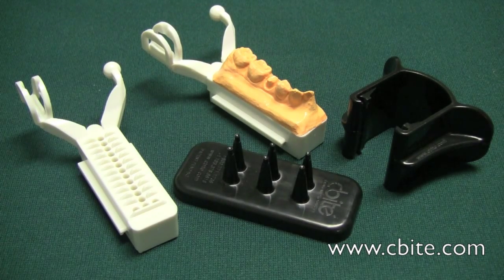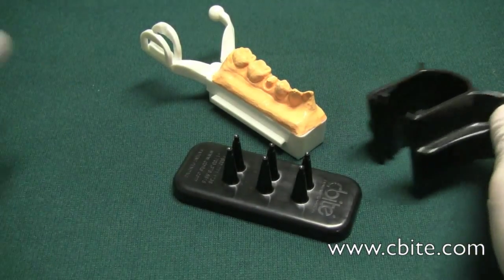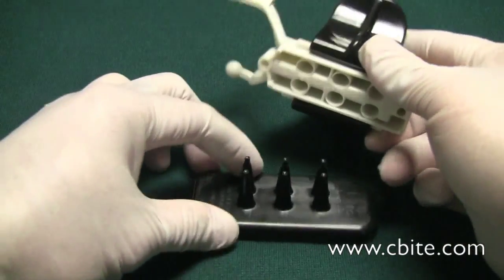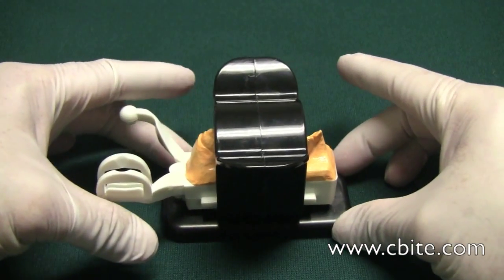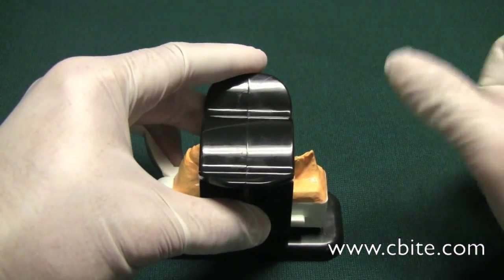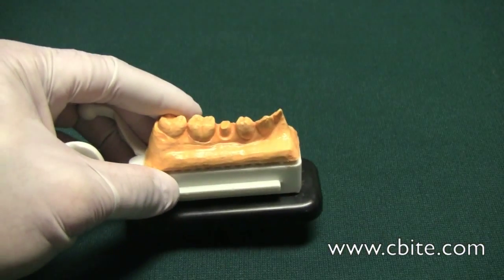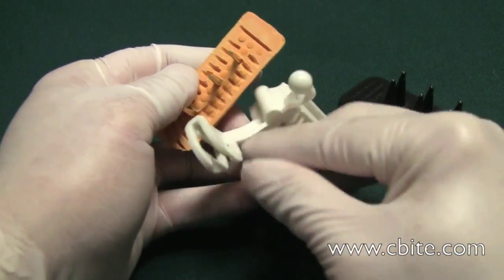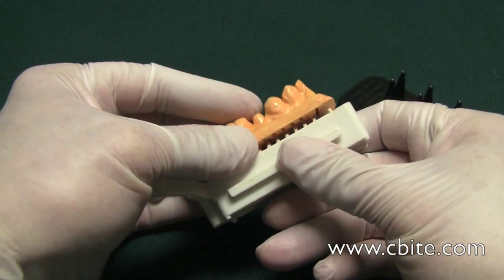The old method of ejecting the Spin Neo was to use the bottom and the upper tool. You take the upper tool, slide it through the side grips, then put the bottom piece directly in the holes underneath. Holding this steady, you can either tap with your fist or a rubber mallet. You tap it down, remove the bottom tool, and it breaks the thin membrane on top, ejecting your model out.